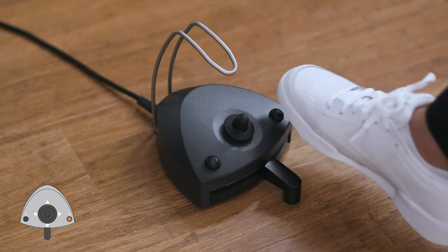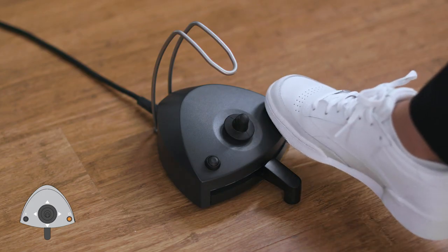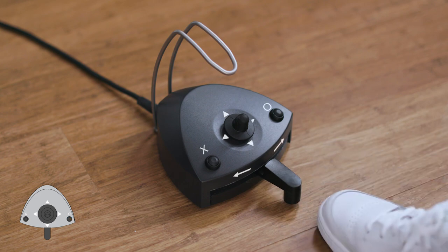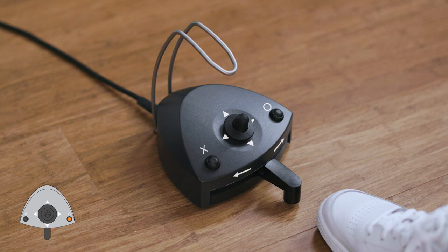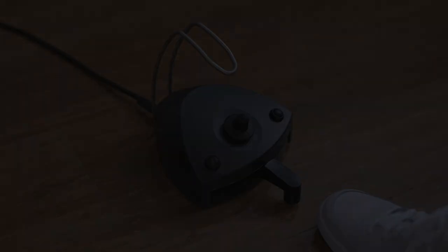Activating O while all unit instruments are at rest will activate a relay contact that may be connected by your technician to a bell or other external signaling device.